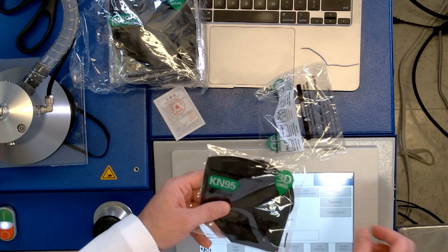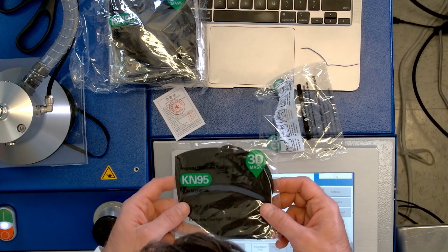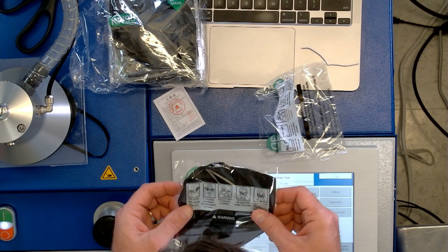While the actual test would be a lot more intensive than this, we're doing a quick test here. This will show you if this generic KN95 is going to pass. We don't even have a name for this mask — it's just labeled 'respirator disposable face mask, non-medical, 2019 standard.'